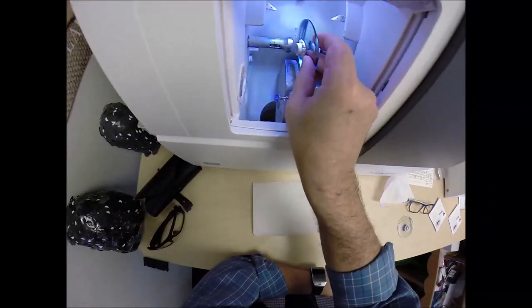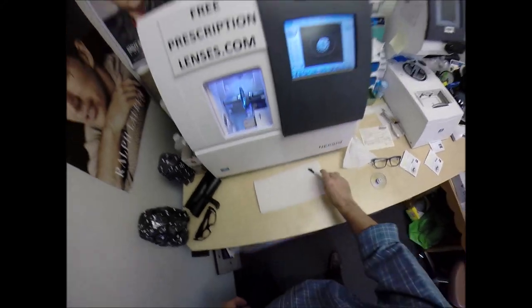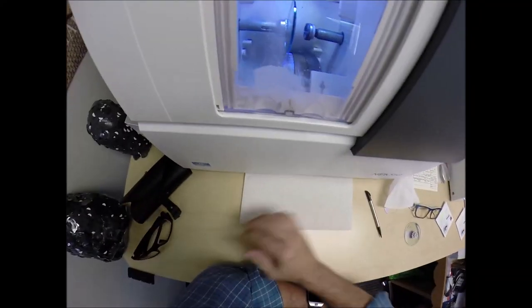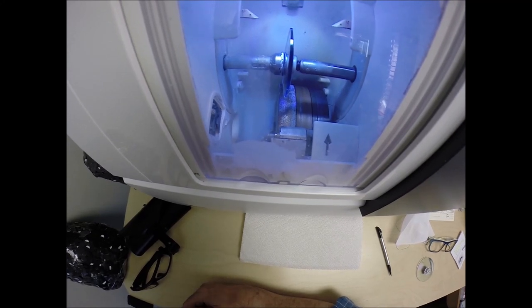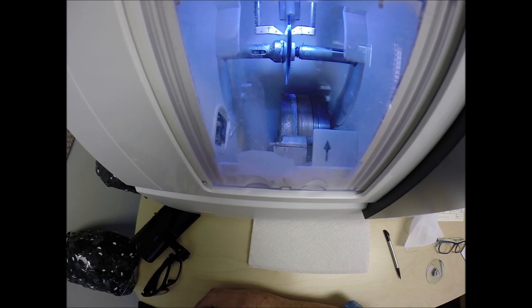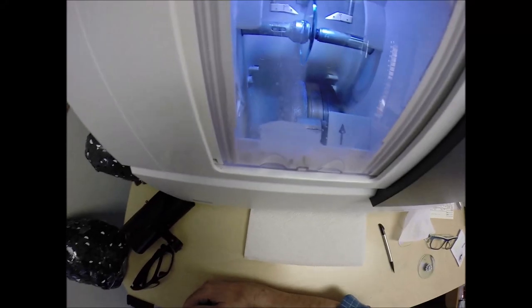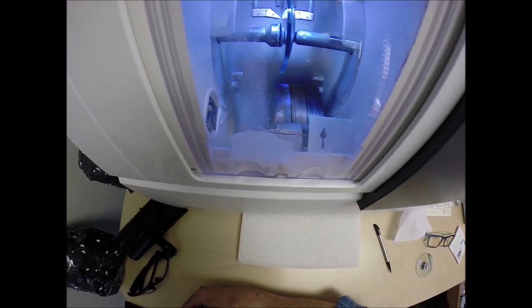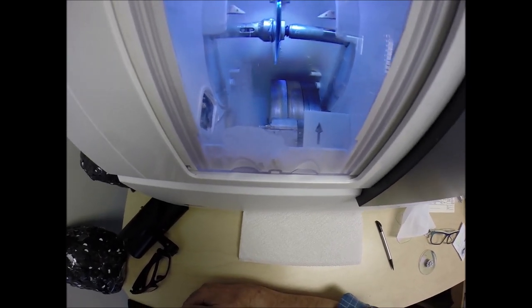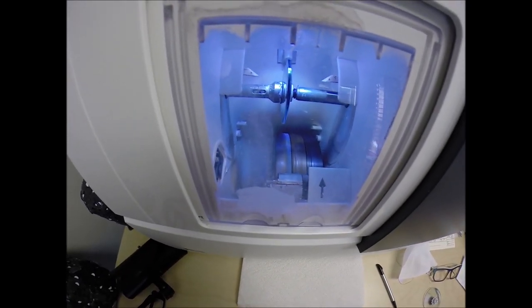I'll press the lens on there firmly and place the magnet into the chuck — or as I like to call it, the Charles. Hit the green start button. The door closes, the clamp shuts. The lens will be traced by two white styluses, making sure it's large enough to fit into the frame. You can see it tracing the shape of the right lens. Like the old carpenter saying 'measure twice, cut once' — it's measuring the thickness of the lens at every point to know exactly where to place the bevel, so you have the least amount of edge thickness showing.